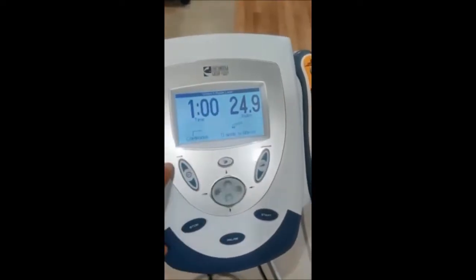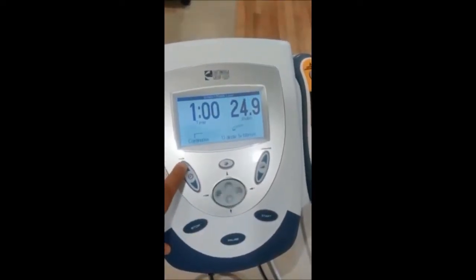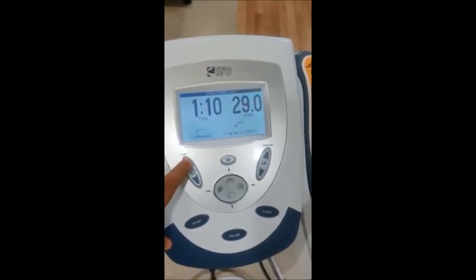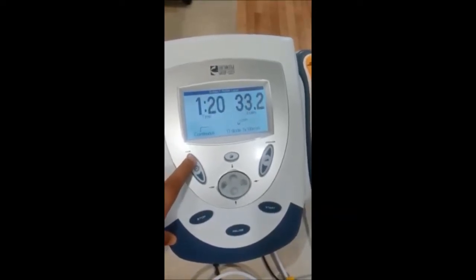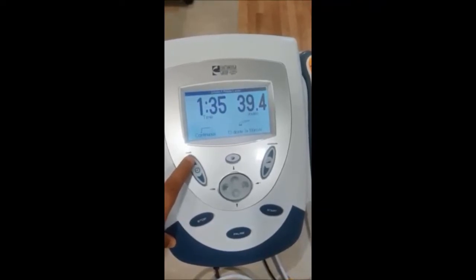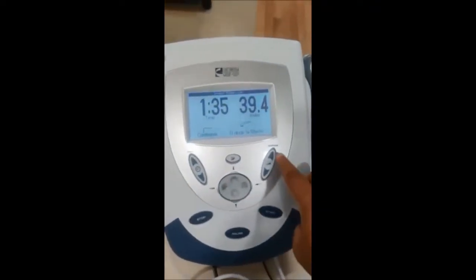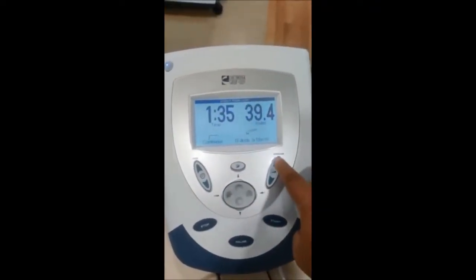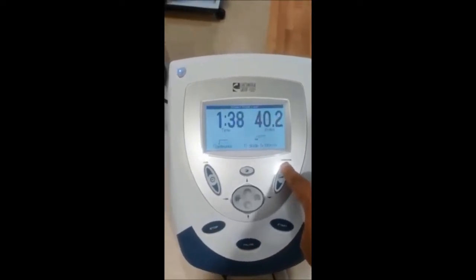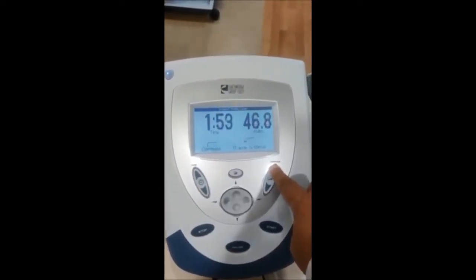This is time and this is joules. To change the time, you have this control here — from here you can change the time, and automatically the joules will change. Or if you have decided that you want to give 60 joules, you can change the joules from here, and automatically the time will change.